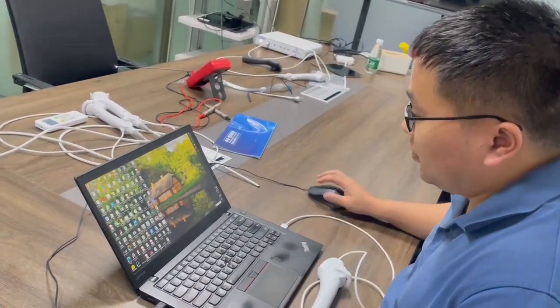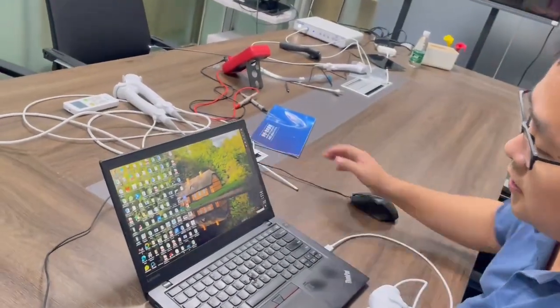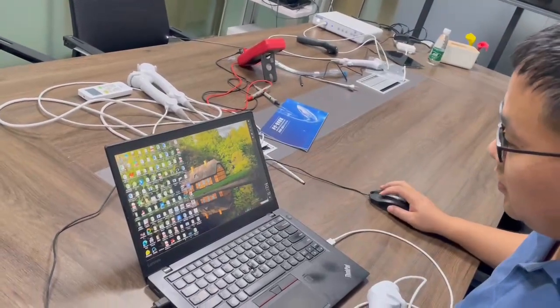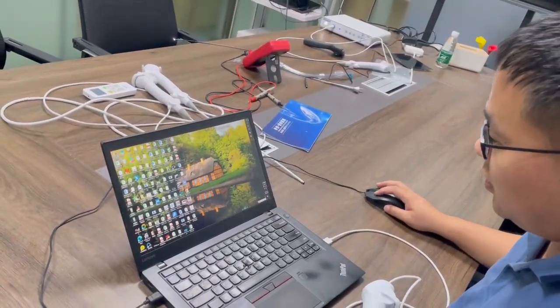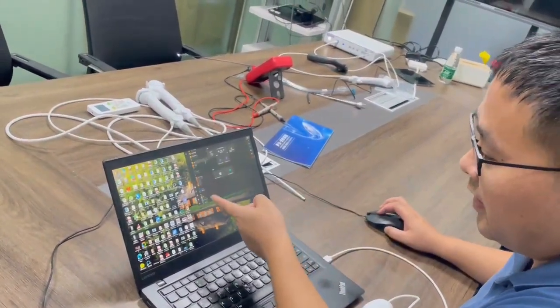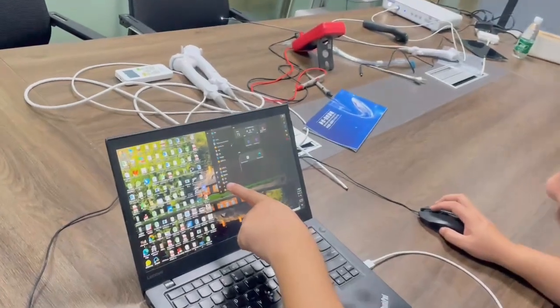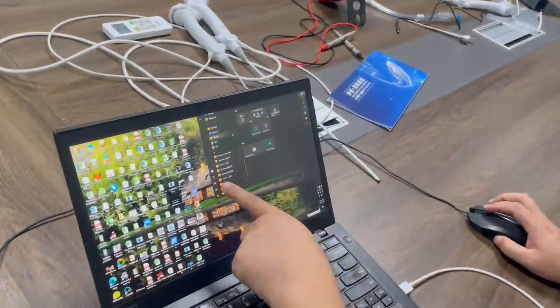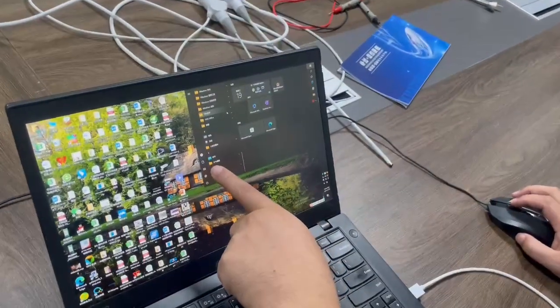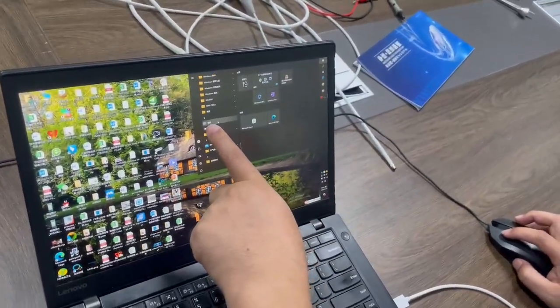We started the Windows system. If the Windows system has a camera, you can see it has a camera.